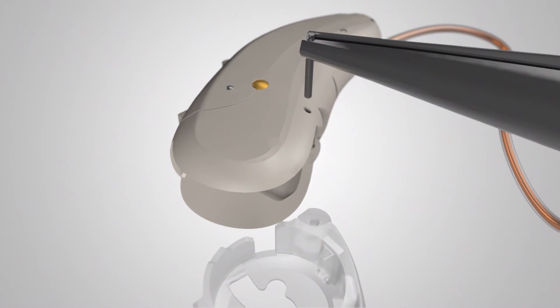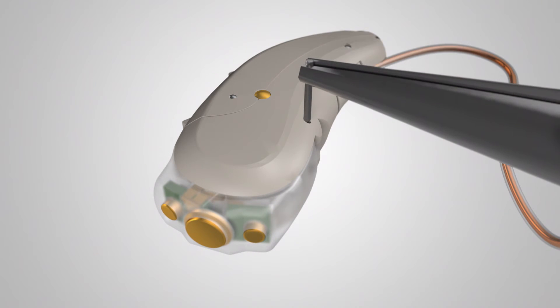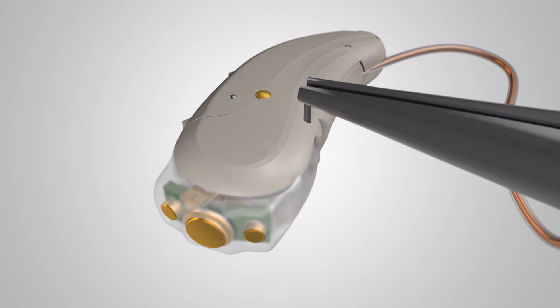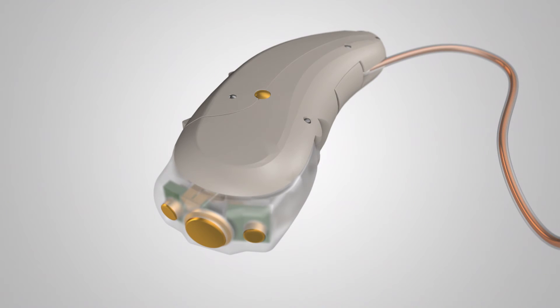Insert the Z-Power battery door module into the hinge area of the hearing aid. Insert the battery pen into the battery hinge holes and into the Z-Power battery module. Open the door.